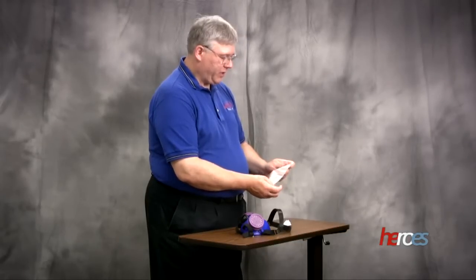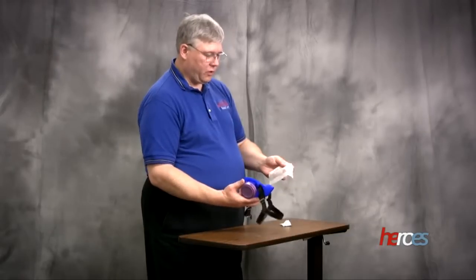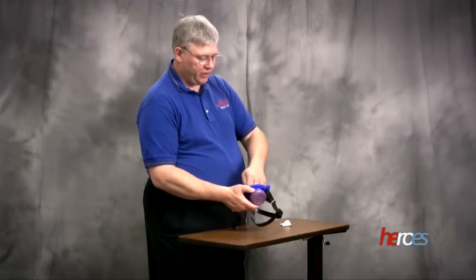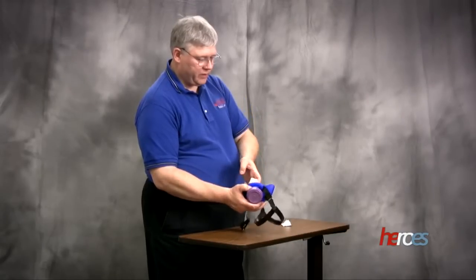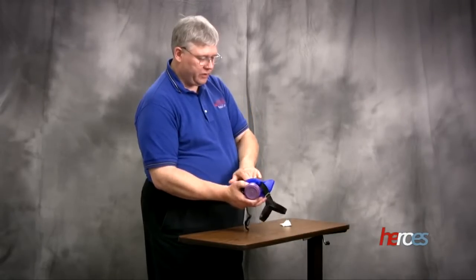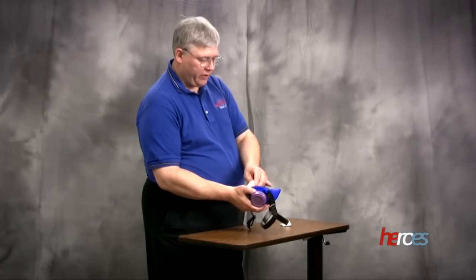Then go ahead and pick up the respirator. You want to wipe the inside of the respirator first completely, covering all the surfaces on the inside, the gaps, the crevices, wiping down the filters. Make sure you wipe every area.